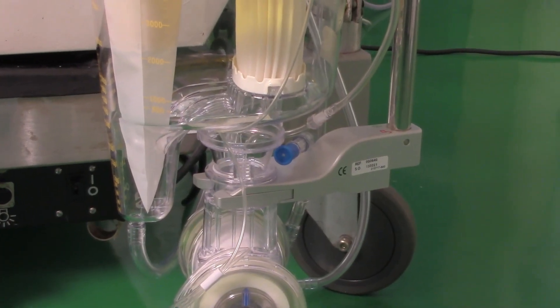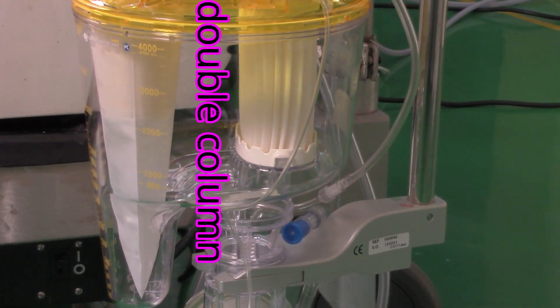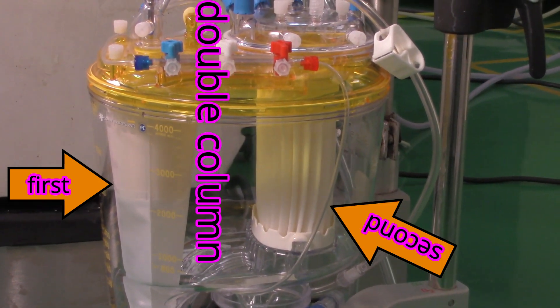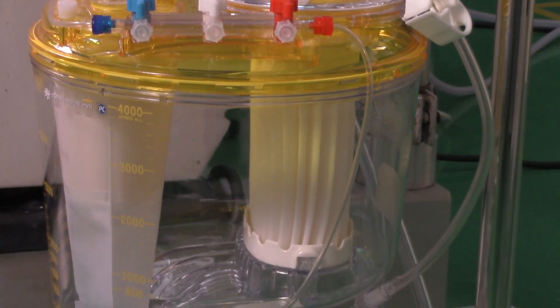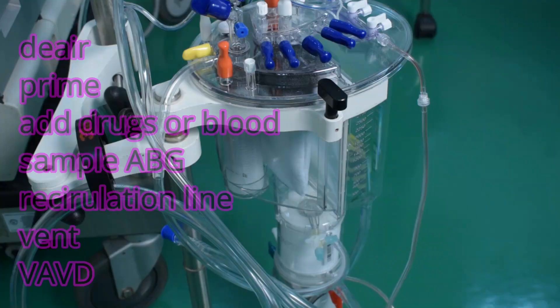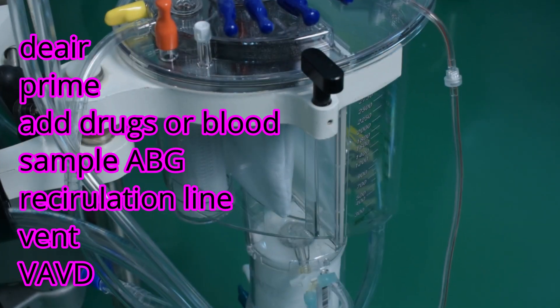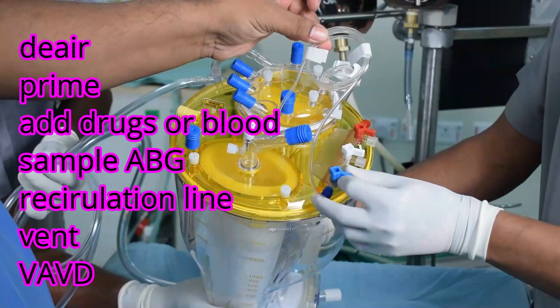A double-column structure is provided within the hard shell reservoir: the first for receiving and degassing venous blood, and the second for receiving, filtering, and defoaming cardiotomy blood or blood from other sources. This reservoir has many connections at the top end which can be used to de-air, to prime the circuit, and to add drugs and blood to the circuit. It also has a sampling line where you can draw blood to check ABGs.